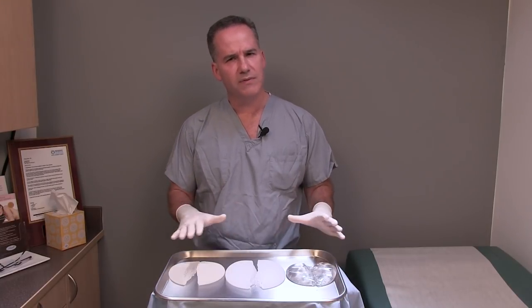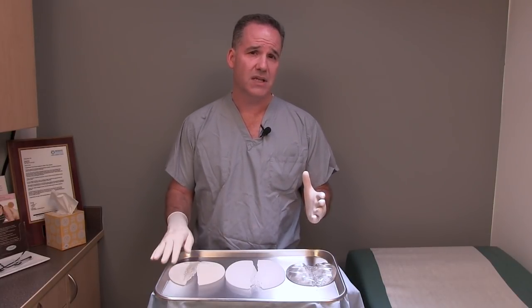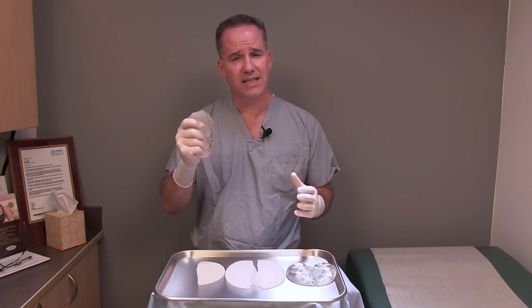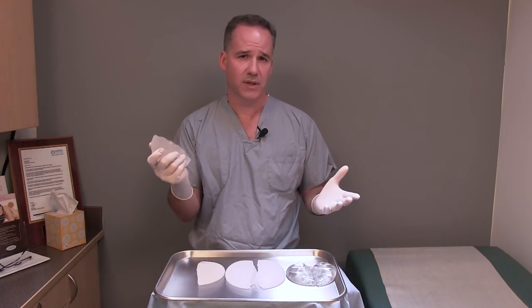So what does all this mean? I think all three of these implants performed better than the old liquid silicone gel implants, and I was really glad to see for myself that they all really did have some kind of gummy bear property — that is, they sort of snap back into place even when ruptured. These are actually cut in half and they still come back to form. That's why they call them form-stable.